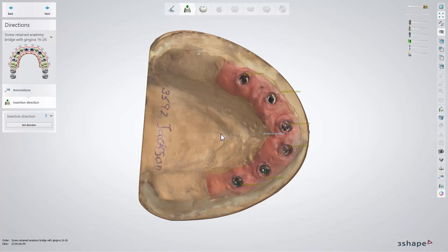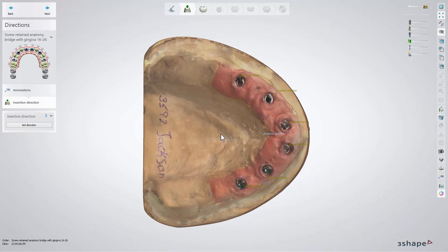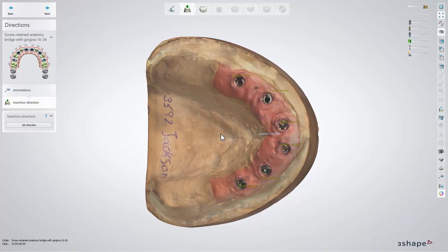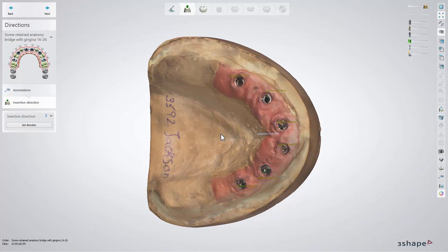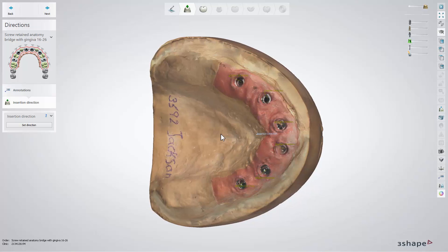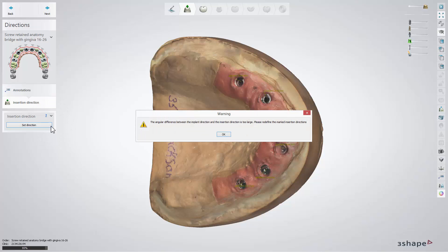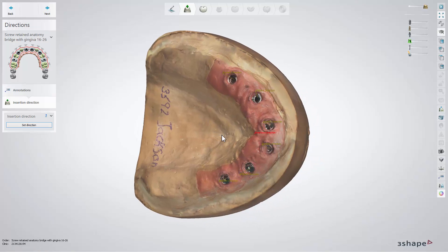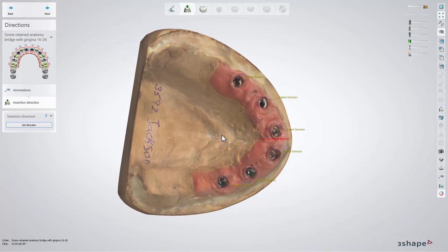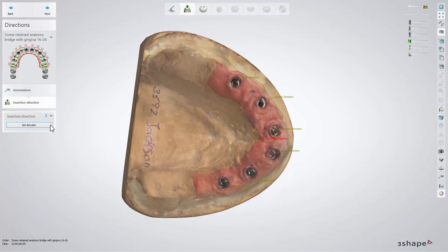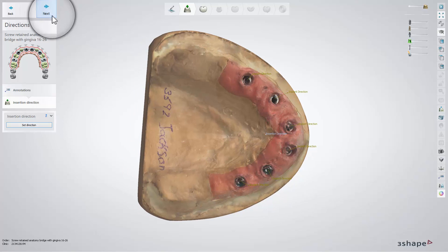In the implant bridge restoration type, screw retained crowns are grouped and have one insertion line for the restoration. An optimal direction will be calculated by the software, but you can modify it at this step. If it is moved too far for abutments, the software will notify you with a red vector and a callout. Once the insertion direction has been set, click next.